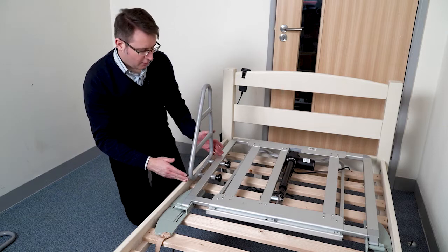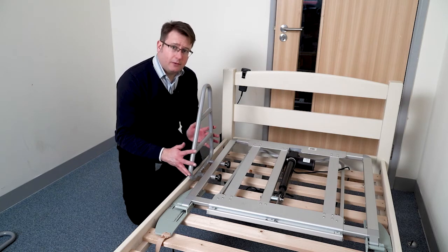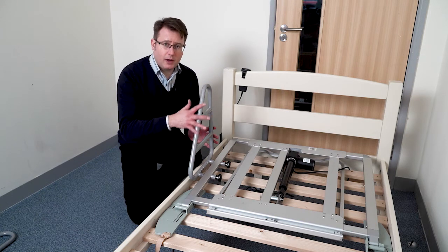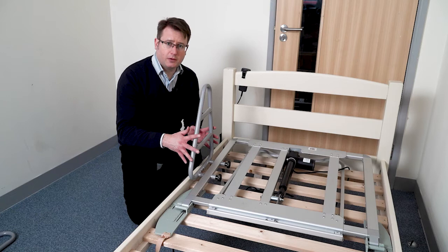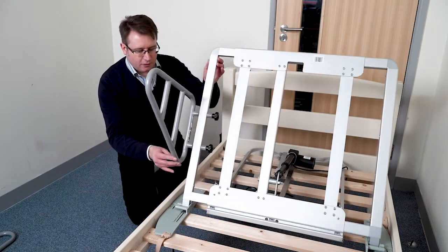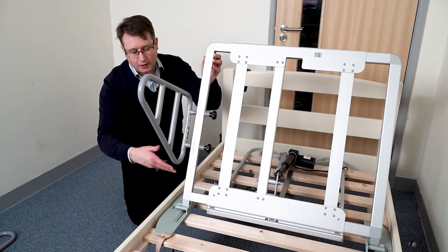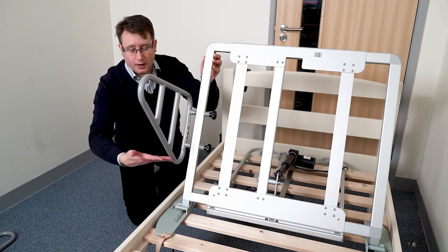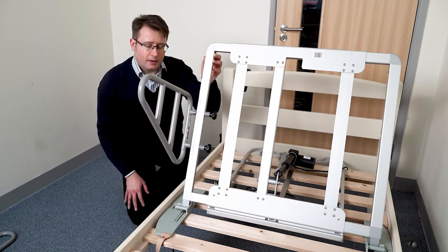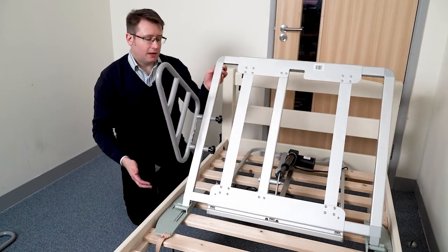Occasionally I get asked whether the side rail can be moved up or down the bed. Unfortunately they have to be in a fixed position, and they are particularly left and right-hand sided because they require the cutaway slope to be at the front of the rail. As the backrest of the elevator goes up to 85 degrees, if a client was sat with their leg outside of the bed and the rail was the other way around with the vertical part up, this may compromise the top of their thigh. That's why the rail has to be in the fixed position and that's why it's that particular shape.